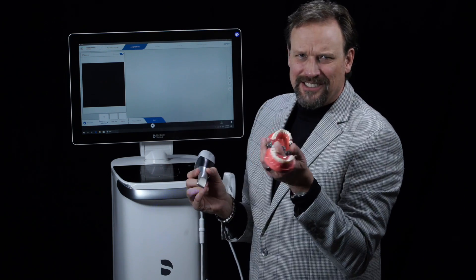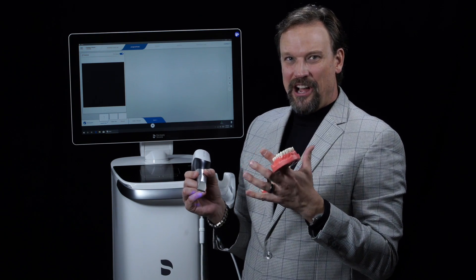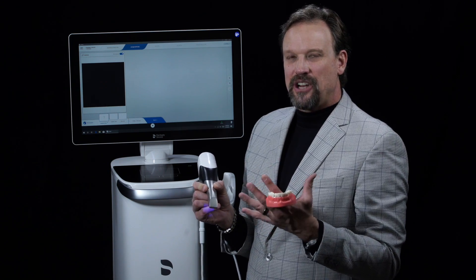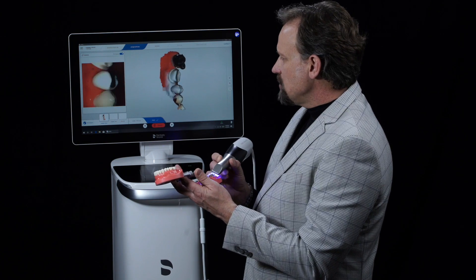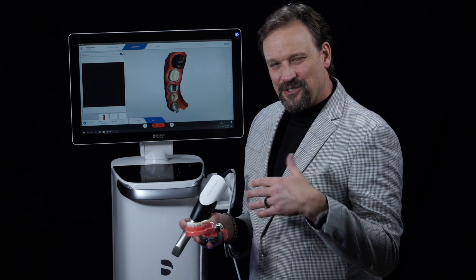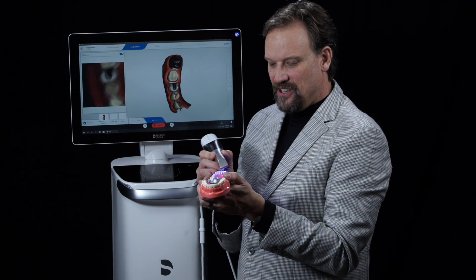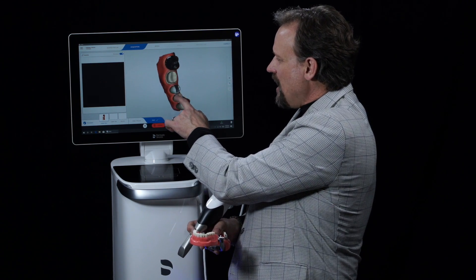Now this is a model. You can see plenty of videos online with people scanning really fast in their mouth, but I'm more concerned about accuracy — and they've combined both. The very high frequency contrast analysis gives better accuracy. The scanning strategy is about 60 degrees — I did three passes: over the occlusal, buccal, and lingual. I've got a little bit on the mesial, which is a gold crown, and it's going to take just seconds to fill in. We've got a lot of data very quickly.